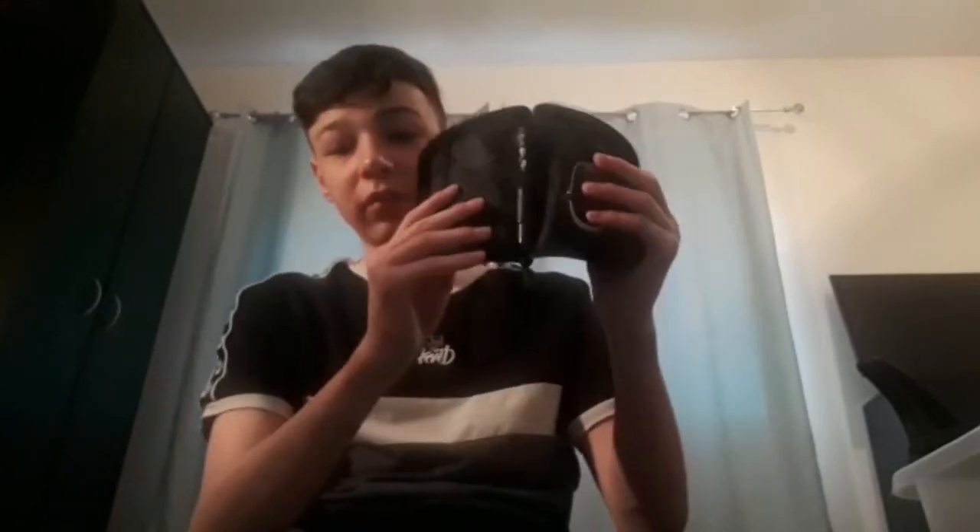I do not use this on the public — I just have it in here, I don't know why. It's a glucometer. I do not use it on the public; I just have it in the kit in case anyone gives me permission to use it, or someone is diabetic and hasn't got theirs on them, so I can offer mine. I'm just going to put this back in.